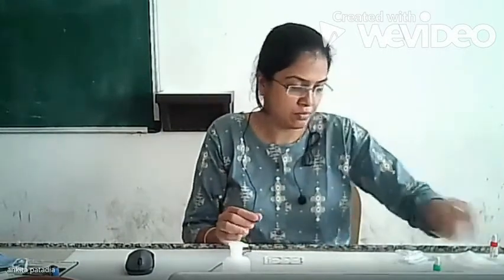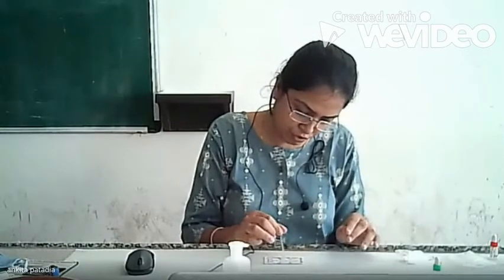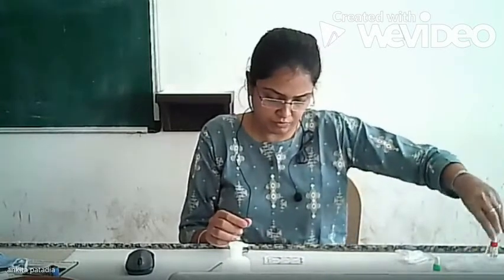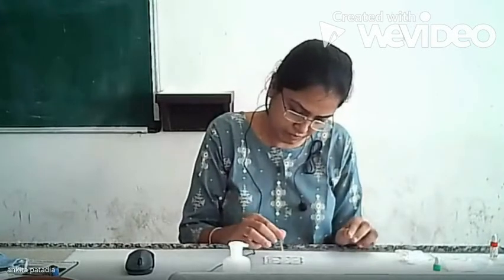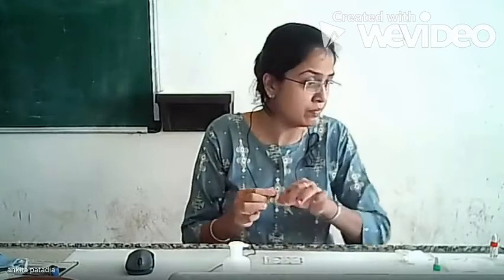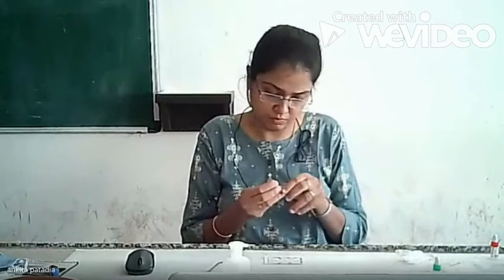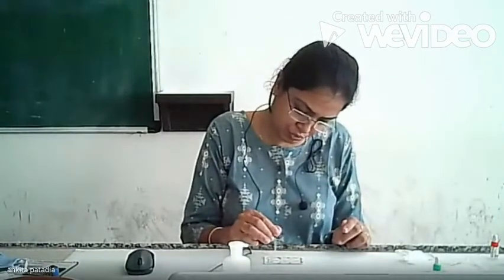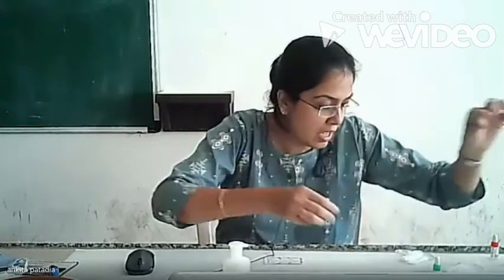From 1:2 to 1:4. 1:4 to 1:8. 8 to 16. To 32, and 1 drop from 32 we will remove to maintain the quantity. Now we will add antigen.